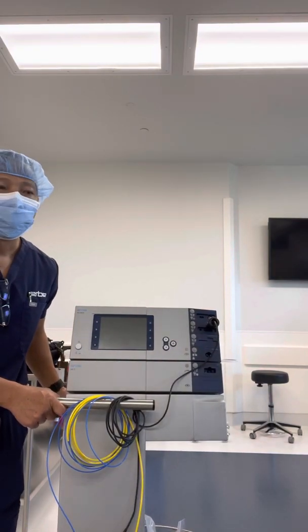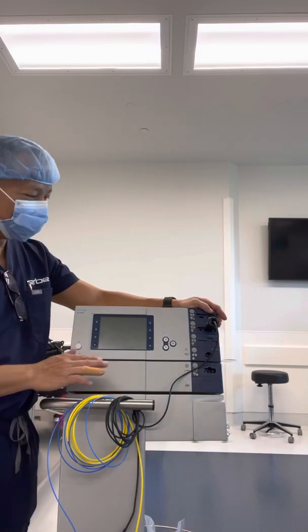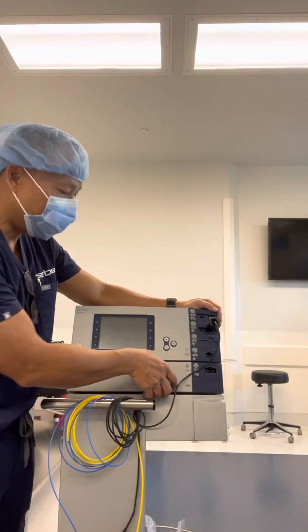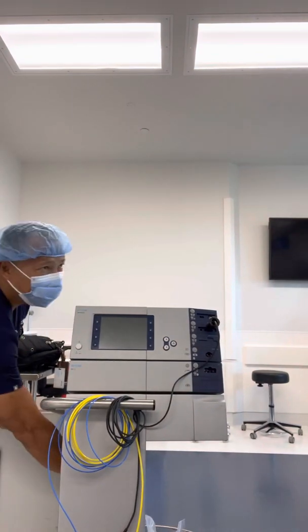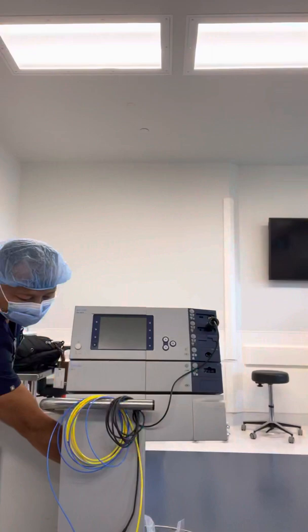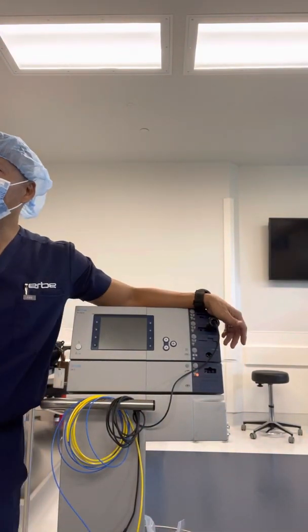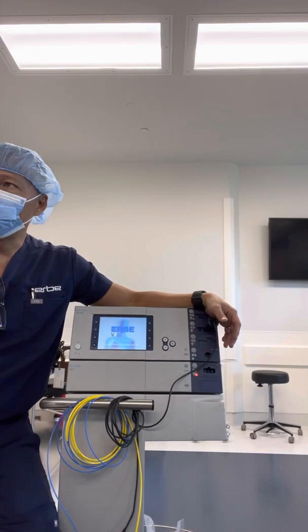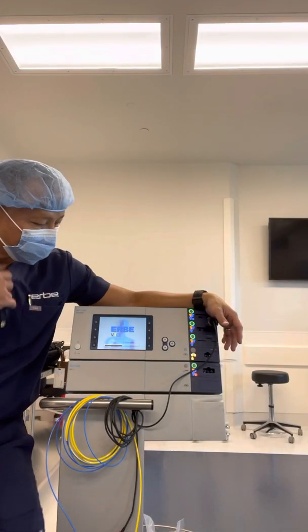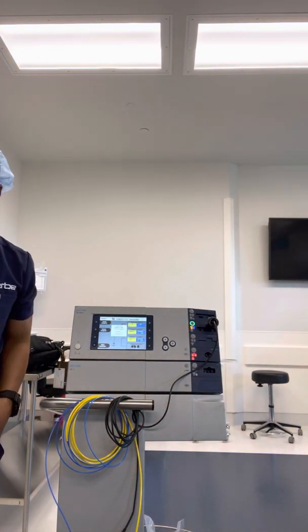This is the generator — the APC three unit. In here is your argon tank. Everything on this unit has already been pre-programmed. It's a two-step process. If you can remember that, you're going to be just fine. How many steps? Two. Can you count one or two?